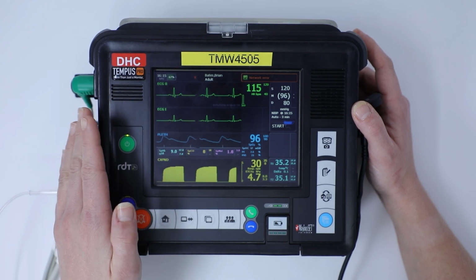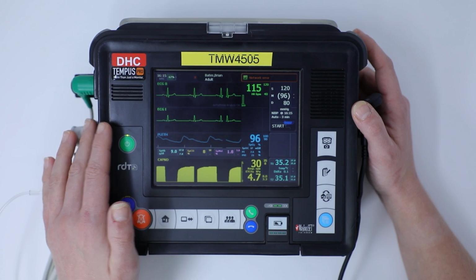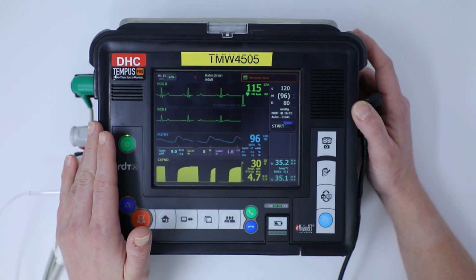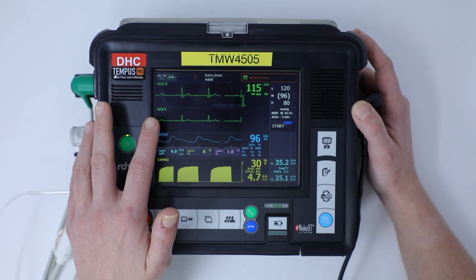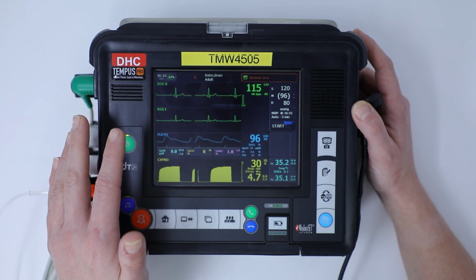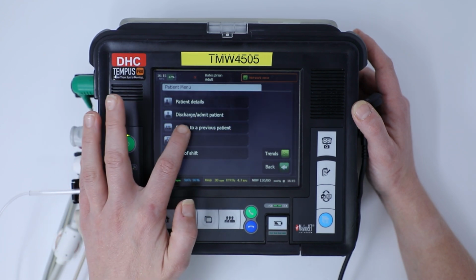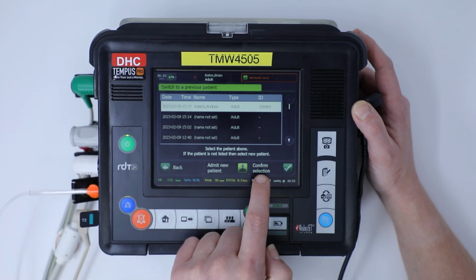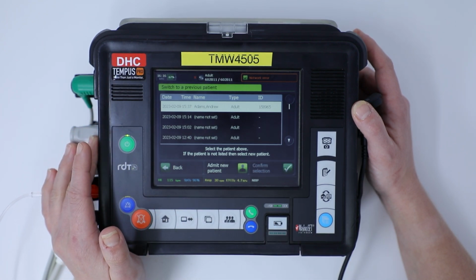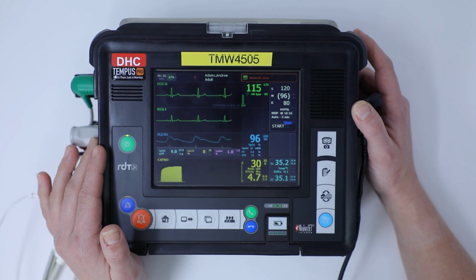I can apply interventions, record events, track waveforms, Burns maps, all of those different functions that we've discussed before. I can do all of that, and once I'm content that I've assessed Brian and everything's up to date with him, I can go back into the patient menu, switch to a previous patient again, go back into Andrew Adams and confirm my selection to look at Andrew Adams's summary record of care.